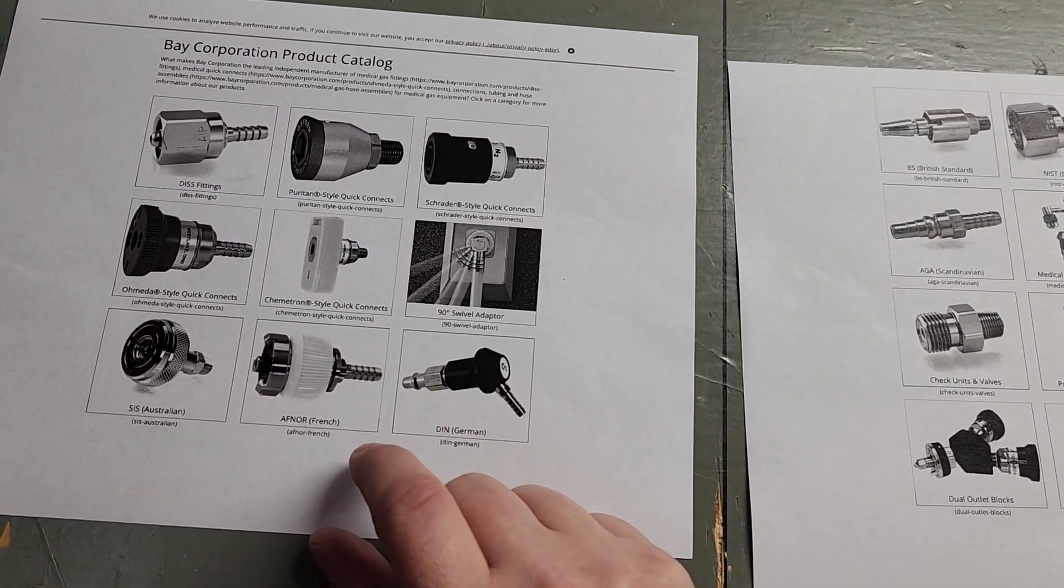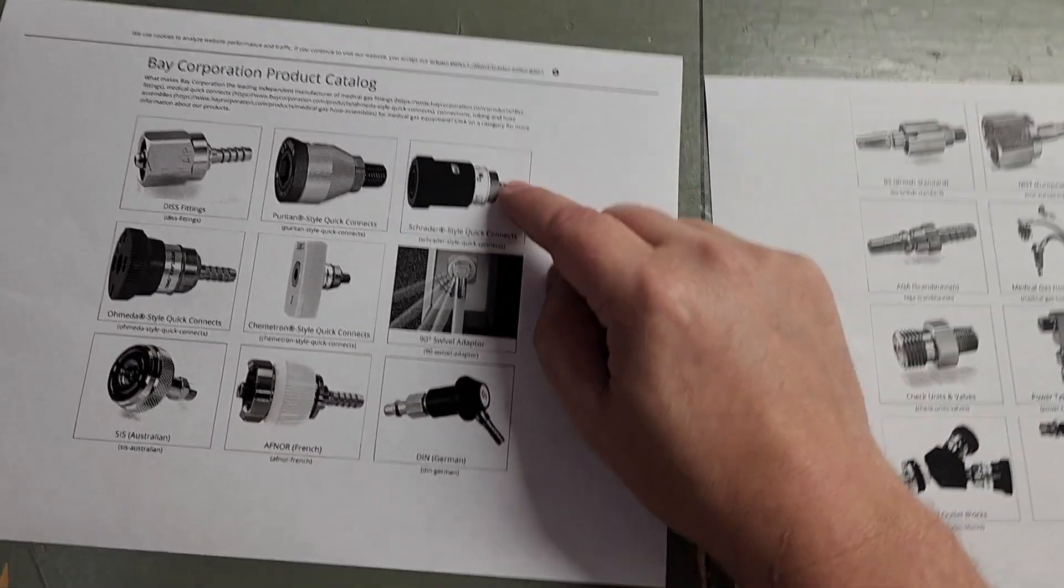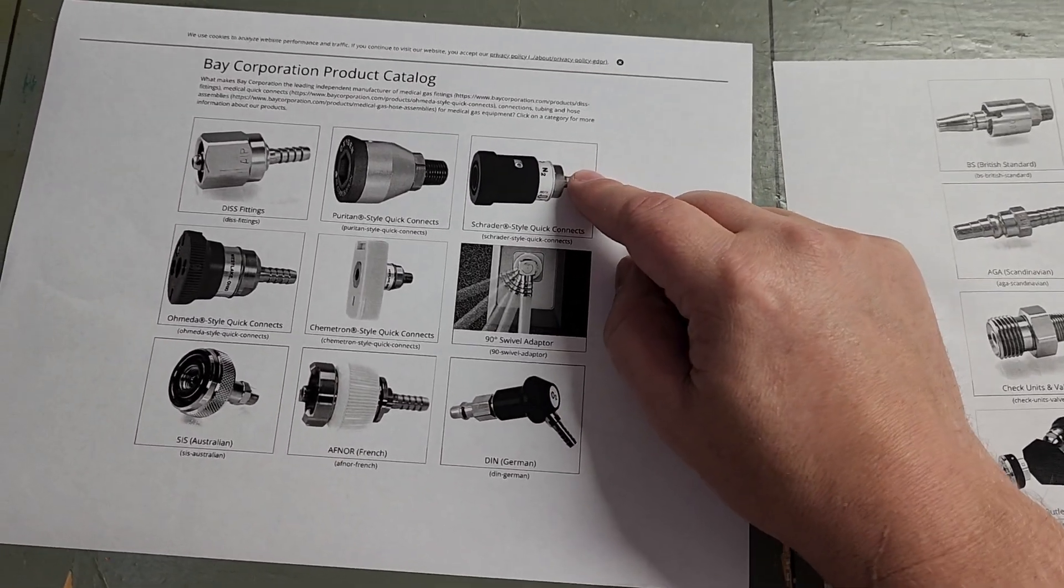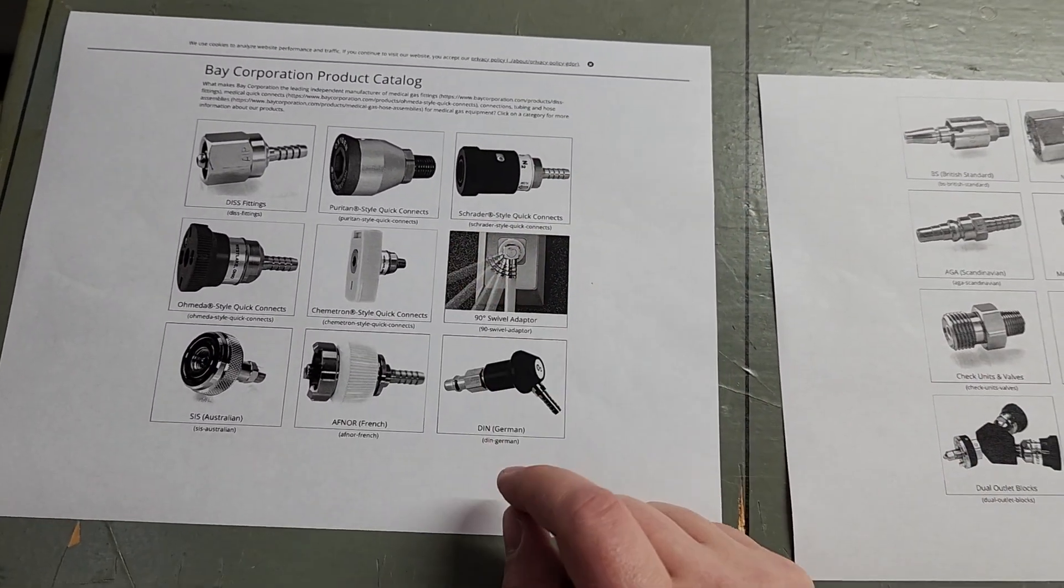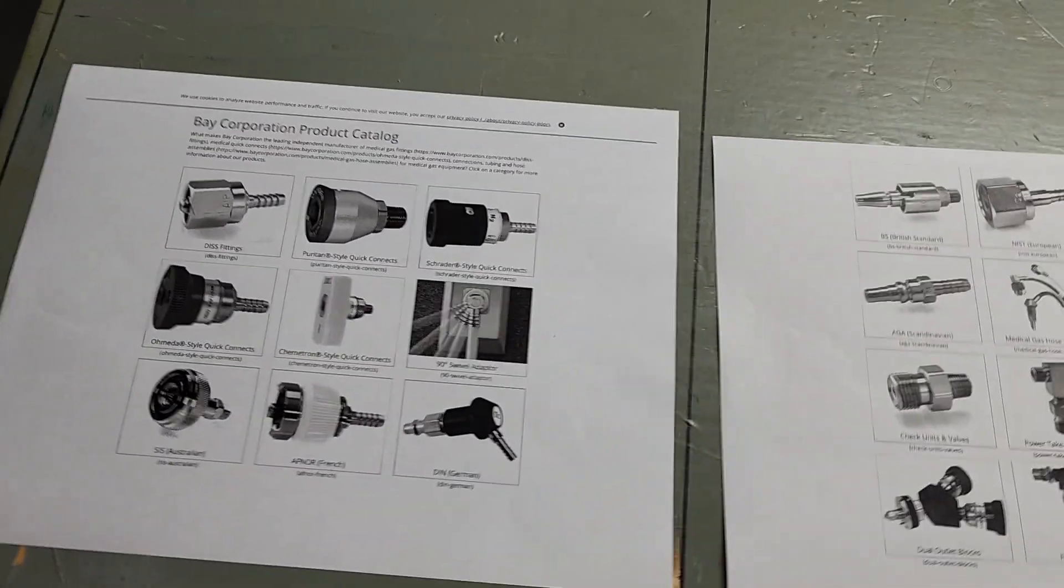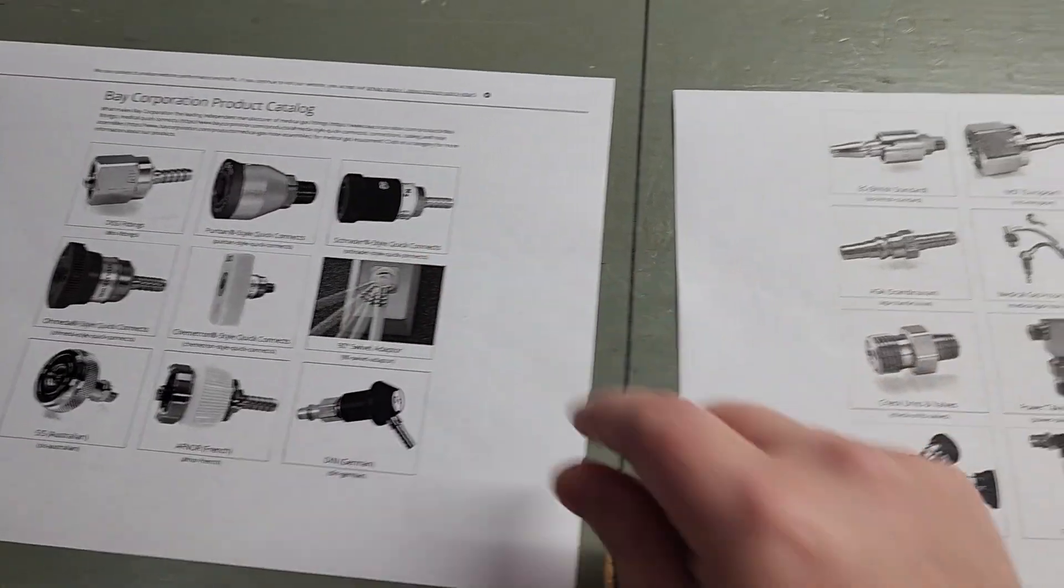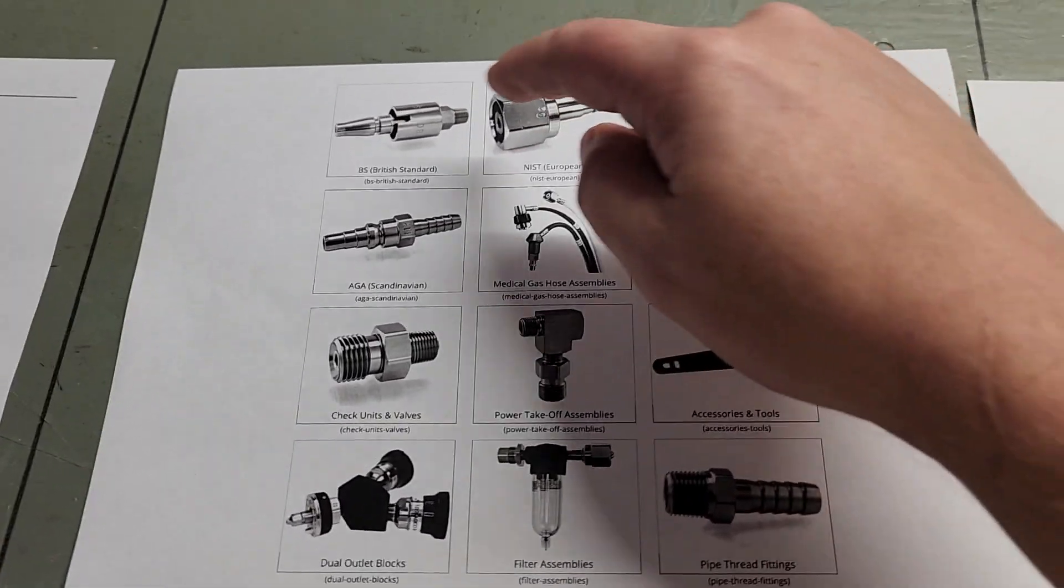The AFNOR, we don't use those. The Schrader style—a lot of hospitals still use Schrader, that's kind of an older style. Chemetron, you might see those. Puritan, definitely see some of those.